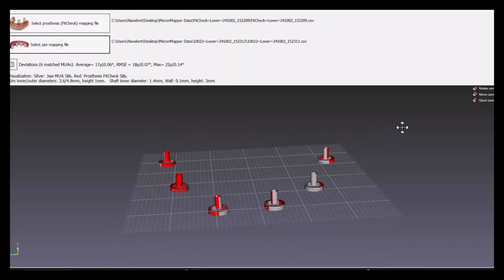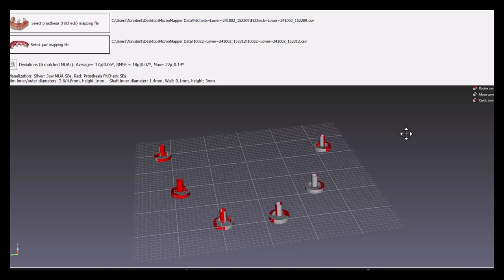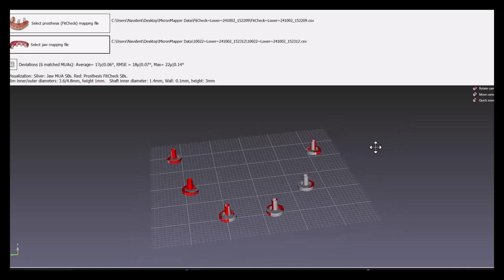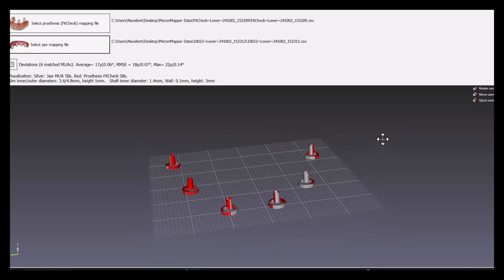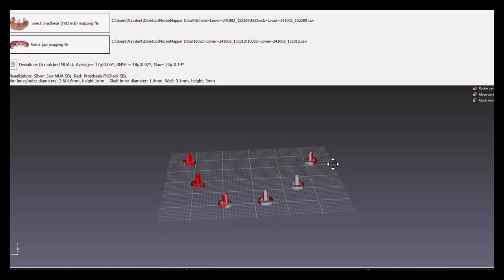Once processed, the software will overlap two mappings for your comparison. Based on the values and visual inspection, you can then judge whether your fabricated restoration will passively fit in the mouth.